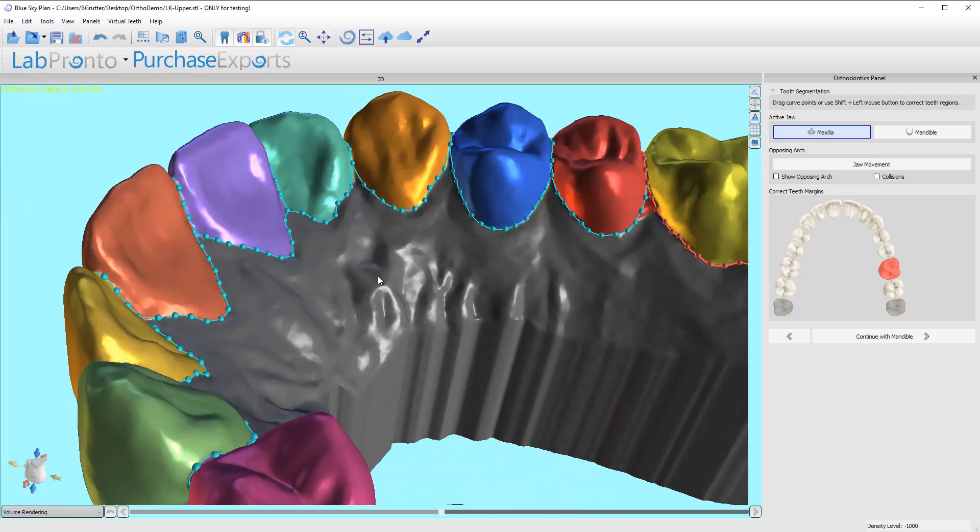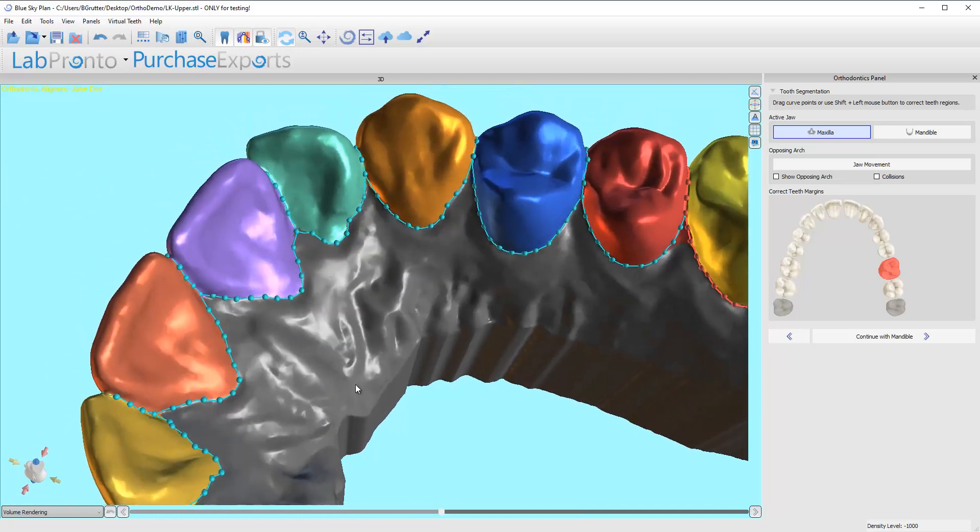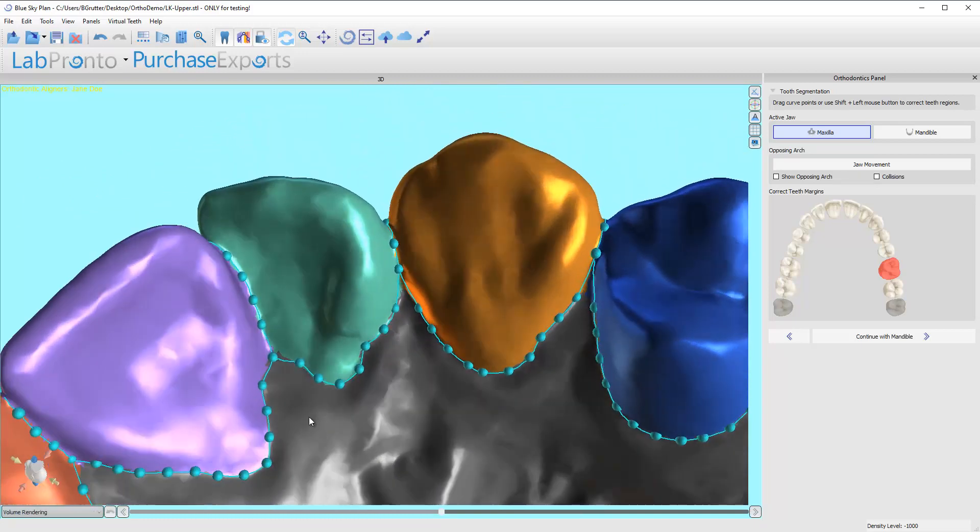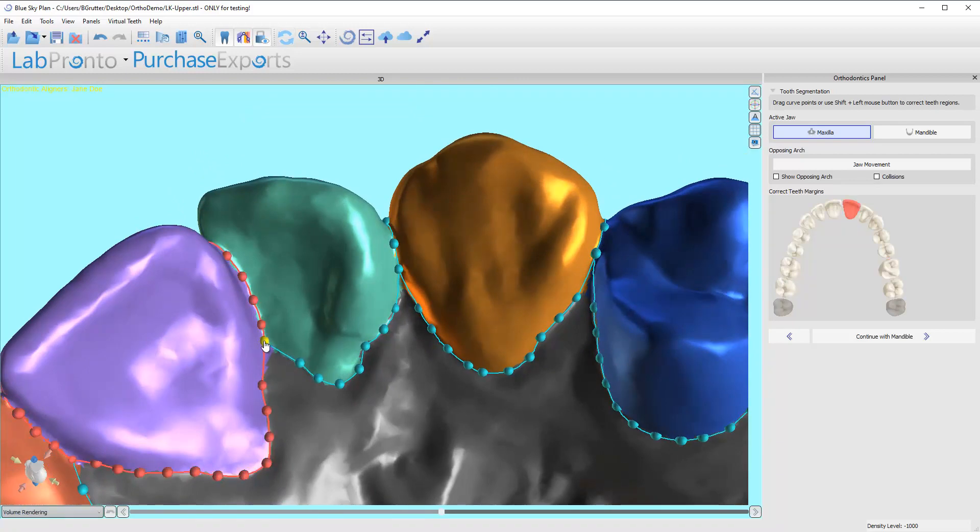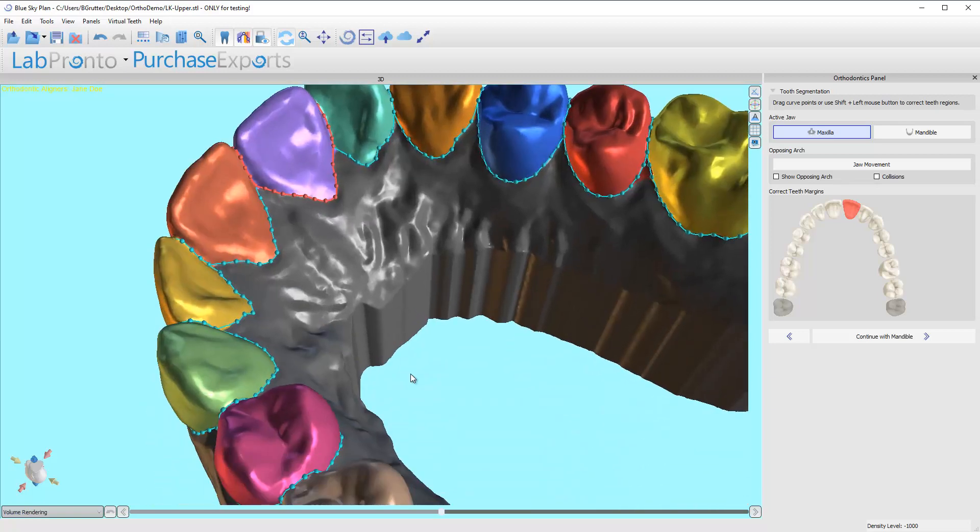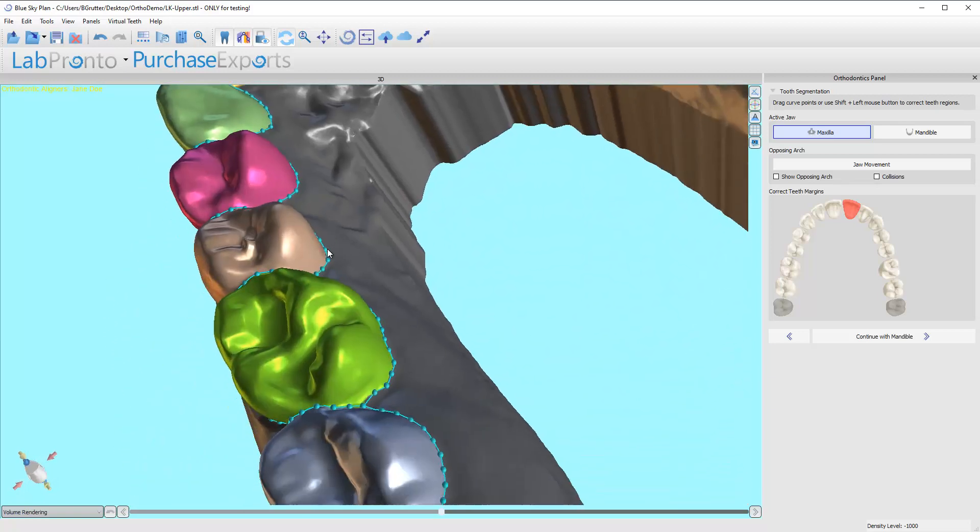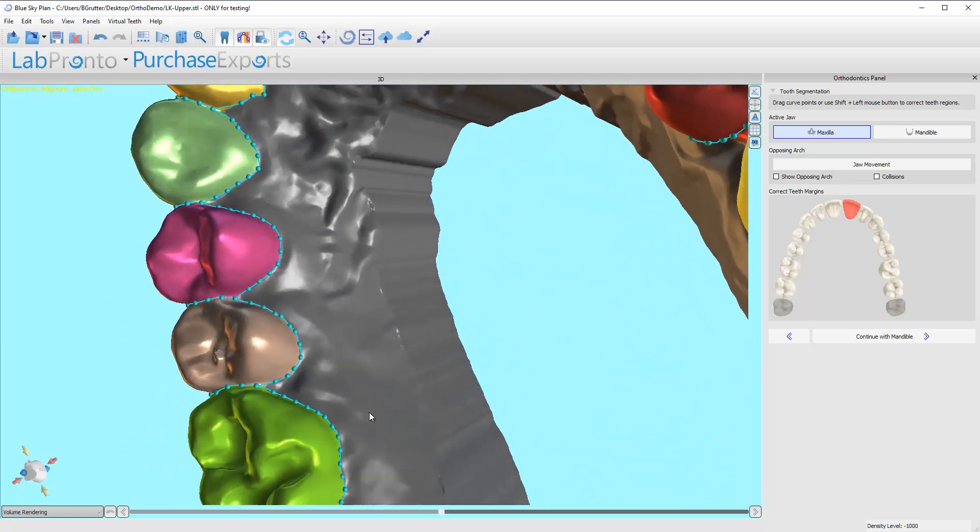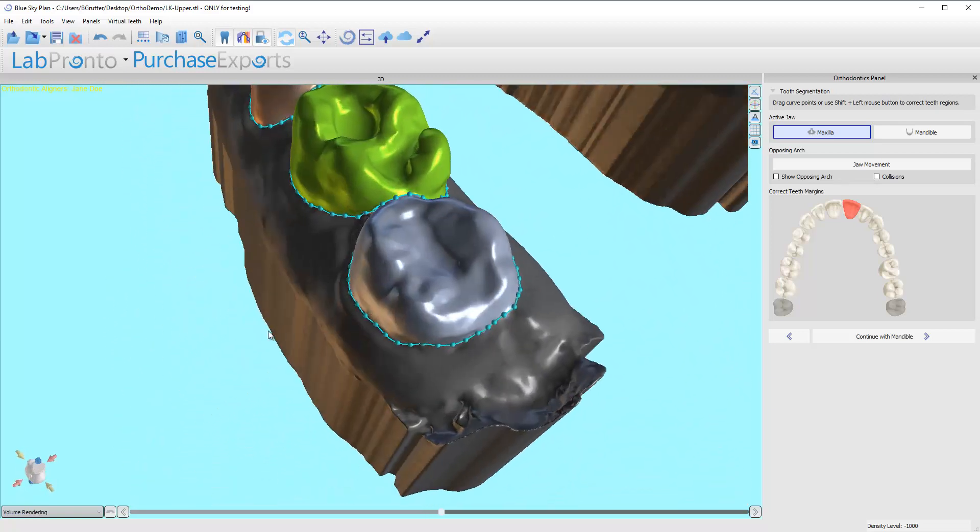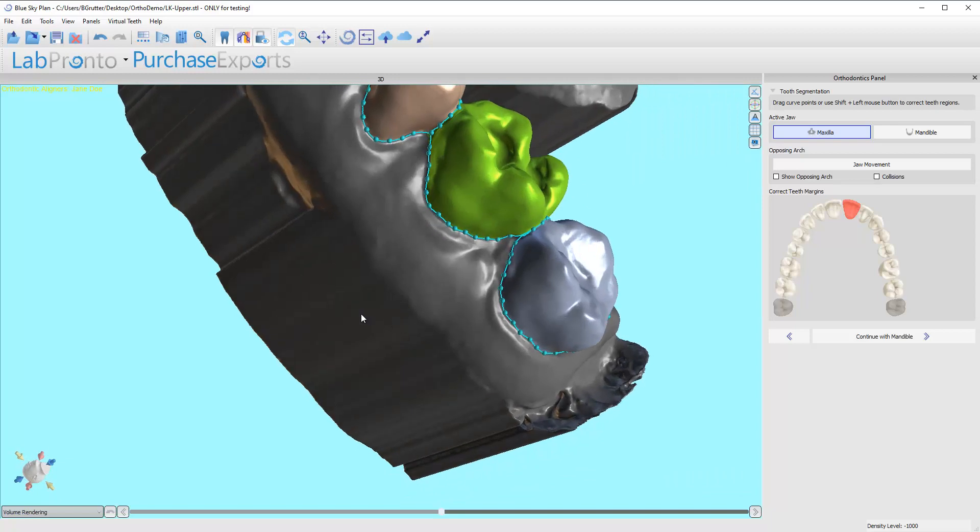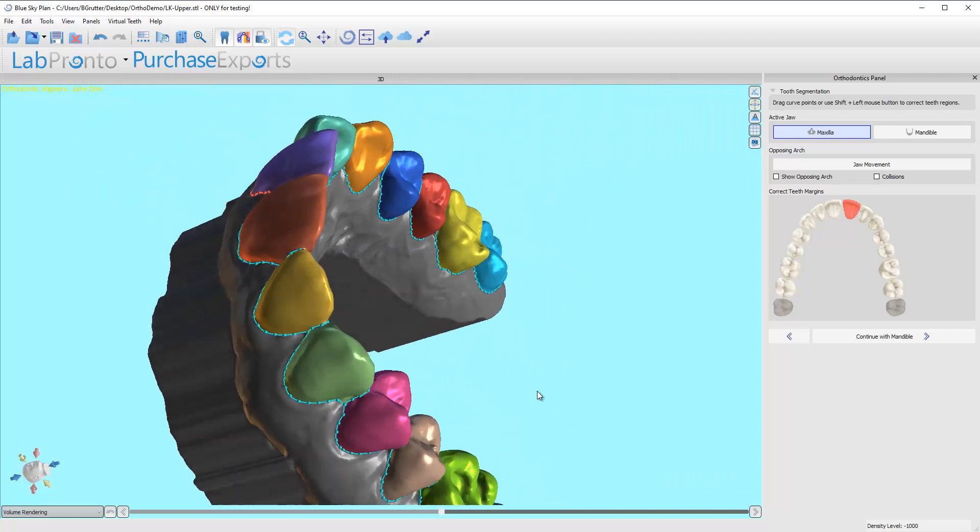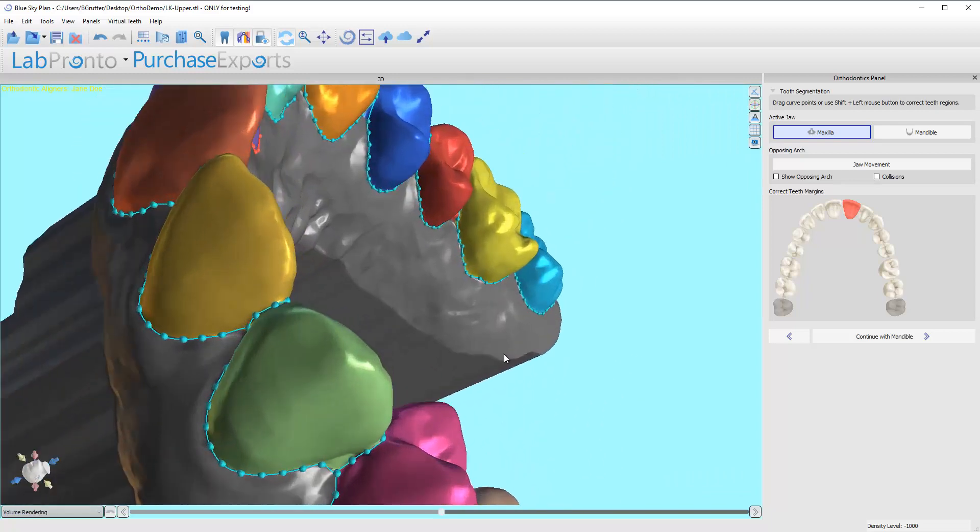A lot of these times I don't even have to touch this in the software. It just does it well for itself. But in this case, maybe it could have done a little better job getting some obvious gingival margin there. The software can only get as good of an estimate based on the quality of the data coming in.